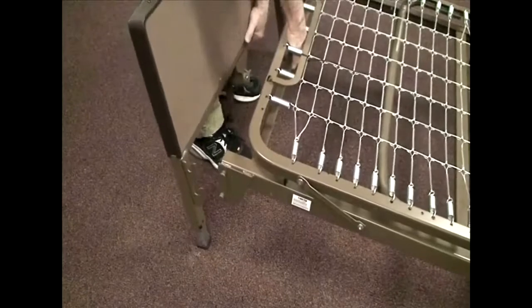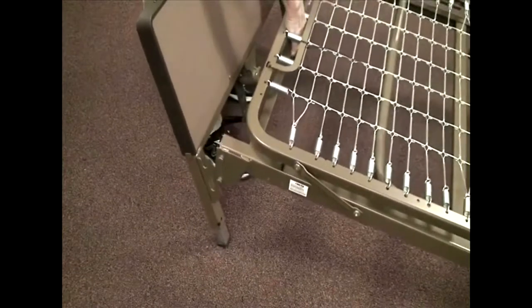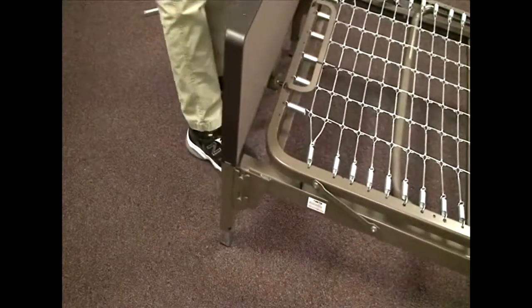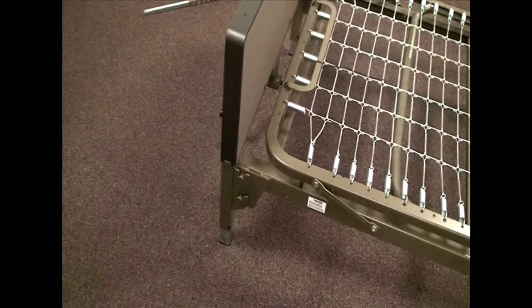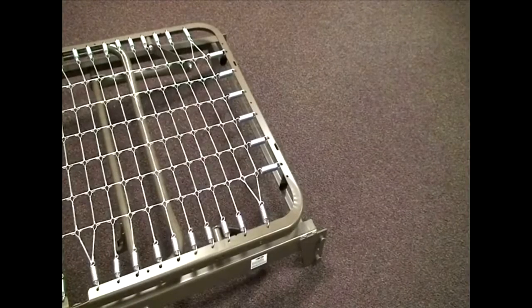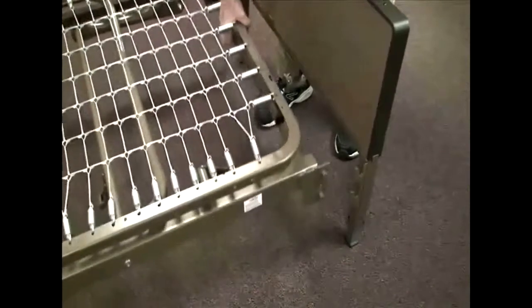We're now ready to install the headboard and footboard onto the frame. We'll start with the foot section. Lift the foot end of the frame and position the footboard at an angle so the bottom pin is directly under the bottom hook of the frame. With the bottom pin in place, tilt the top of the footboard toward the center of the bed — the top and bottom hooks should now drop into place. Repeat essentially the same procedure for the headboard, making sure you lift at the bottom of the frame rather than the upper spring frame.